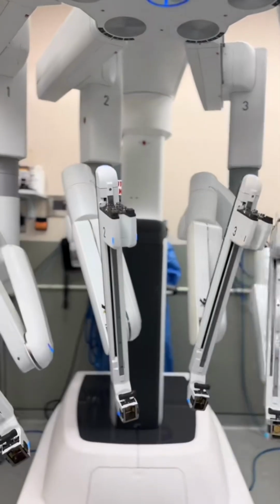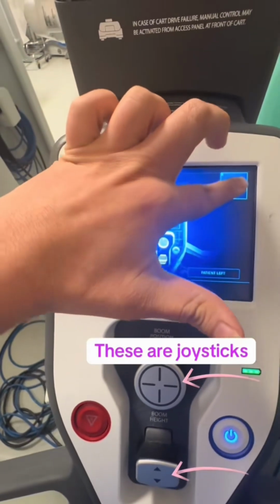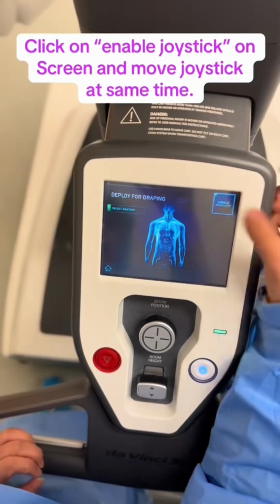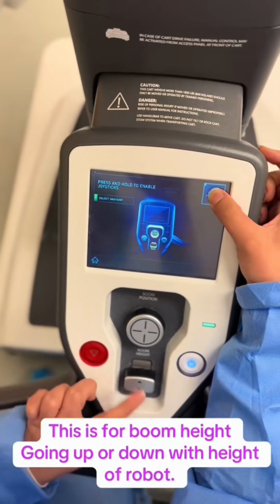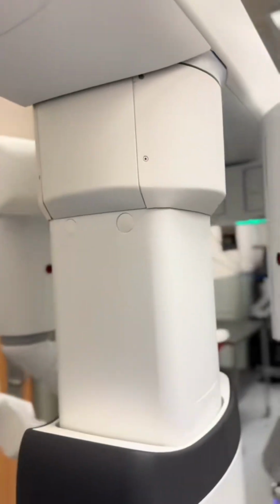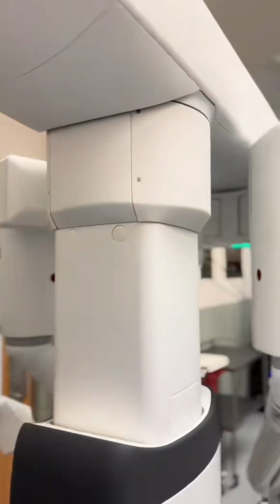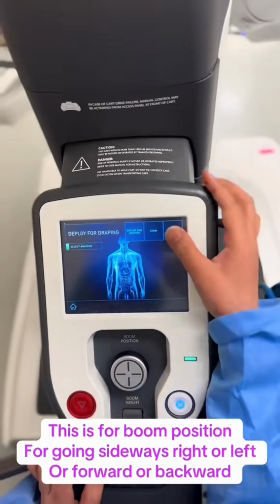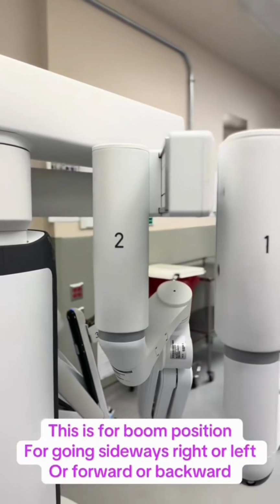Similarly, to adjust height and position, there are two joysticks below the screen. To enable those joysticks, we should click on enable joystick and move the joystick at the same time. For example, click on enable joystick and move the joystick that says boom height upward to increase the height of the boom or robot, or move the joystick downward to decrease the height. The joystick that says boom position is to move right, left, forward or backward.